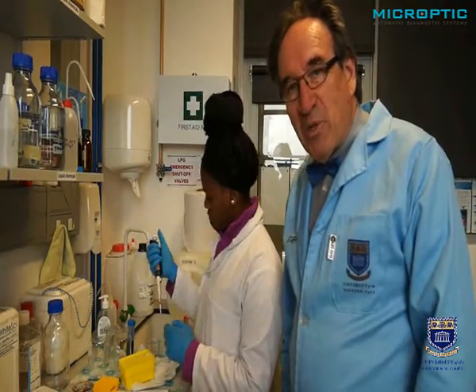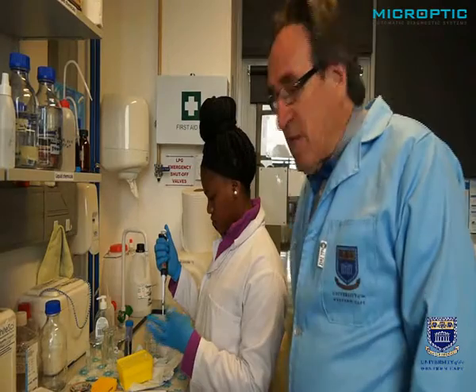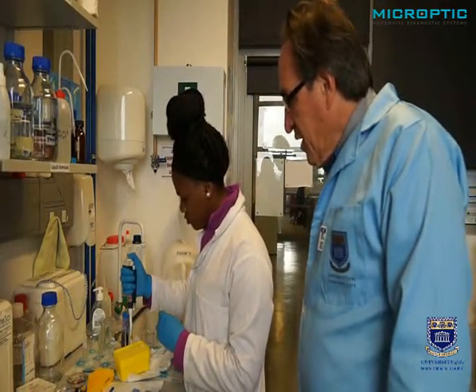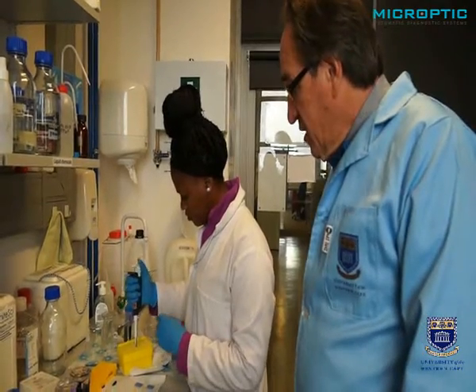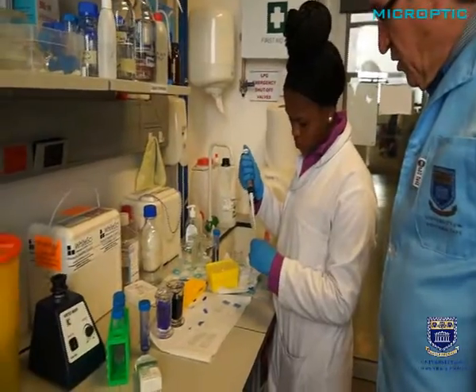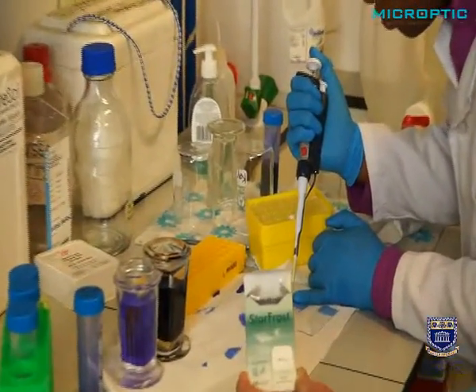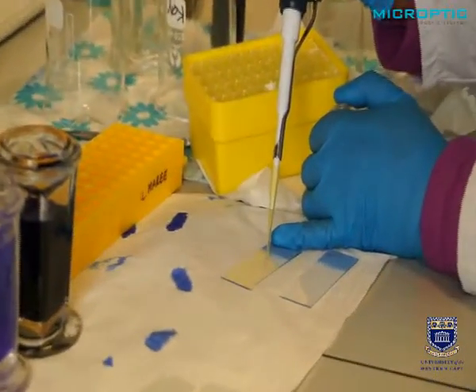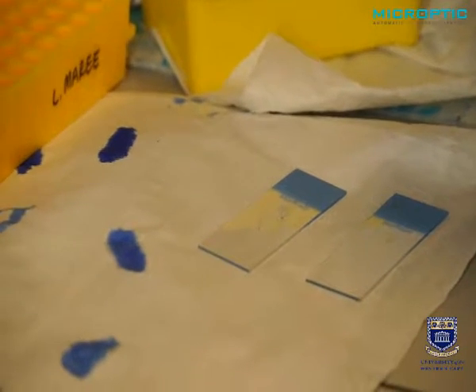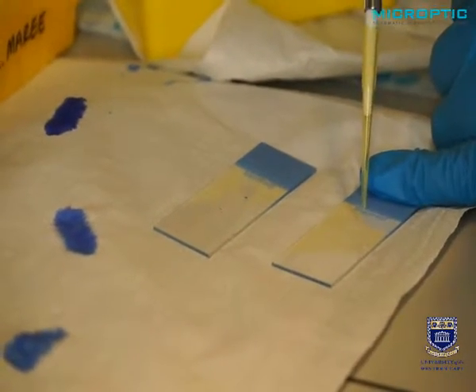Now that we've completed the motility, we're going to show you how to make a proper sperm smear. Asanelli is going to take 10 microliters of the raw semen, the neat semen, and she's going to put it on the side of a so-called Starfrost slide. These are Starfrost slides. They are electrically treated to adhere more sperm. She's going to put 10 microliters also on a duplicate slide of the Starfrost type.